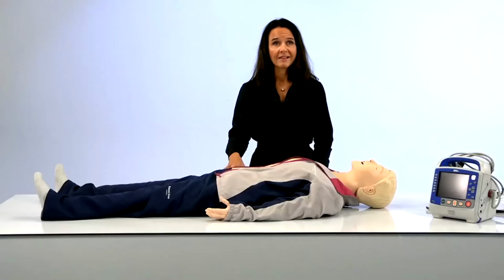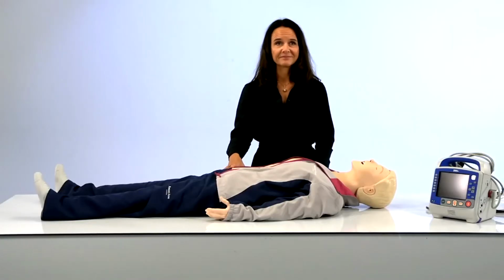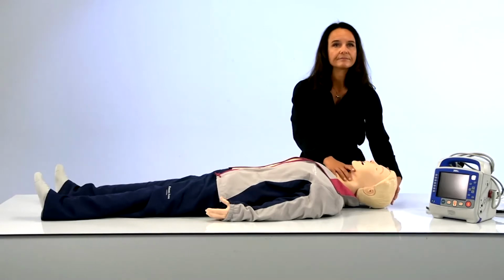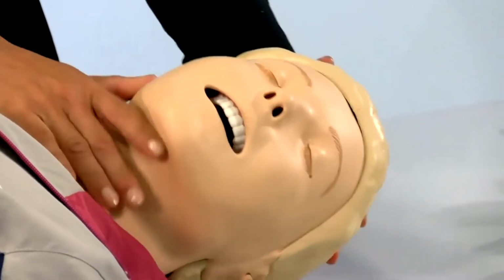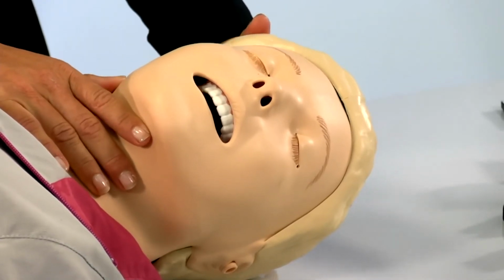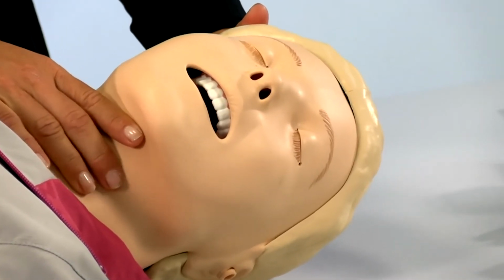To enhance the experience and go beyond what I can physically demo myself, we will have photos and videos appear on screen throughout the presentation. Let's get started and have some fun. We're going to start with the head. This mannequin has an airway head. You can choose between a standard head and an airway head.